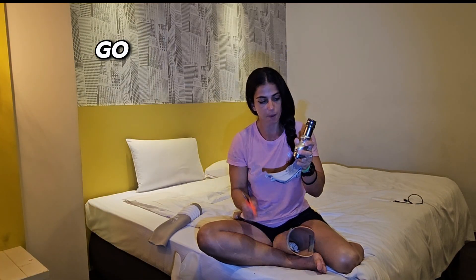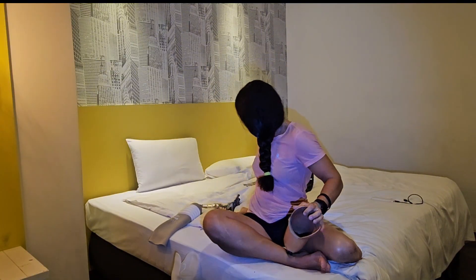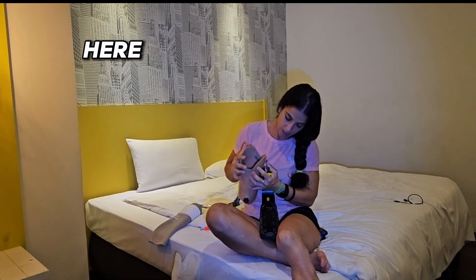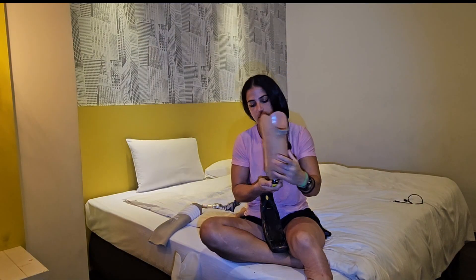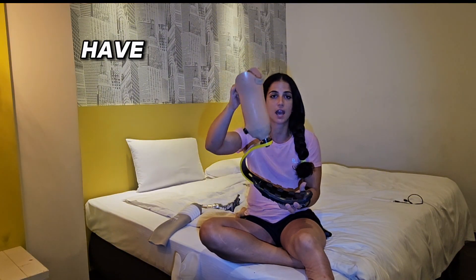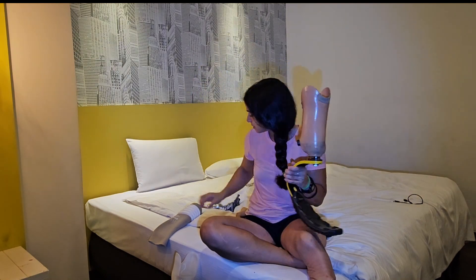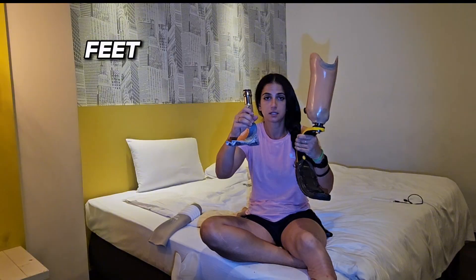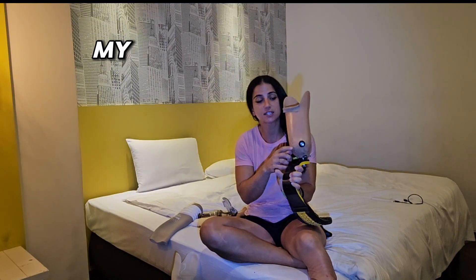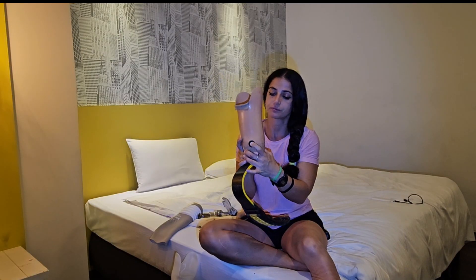So now let's go back — this is not a leg anymore, we only have a foot and socket. This is going to be attached right here. And now we have a leg for running and jumping! Feet and legs, all the world's pieces together. My socket has this valve — this is for added suspension.